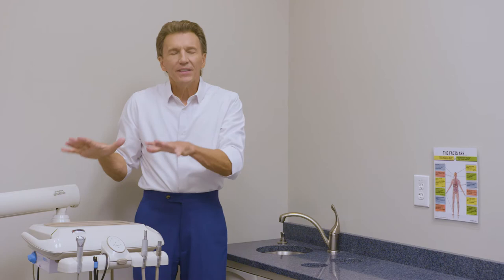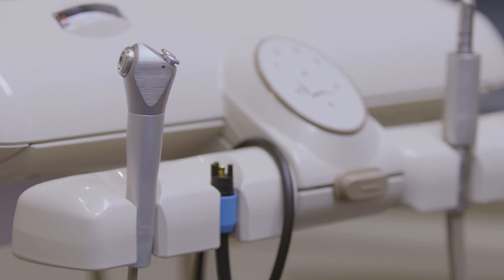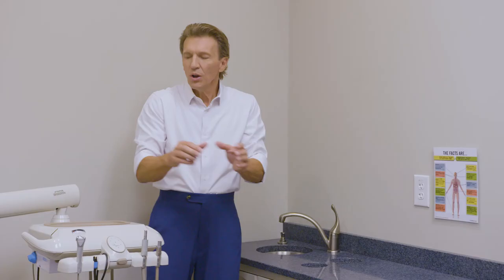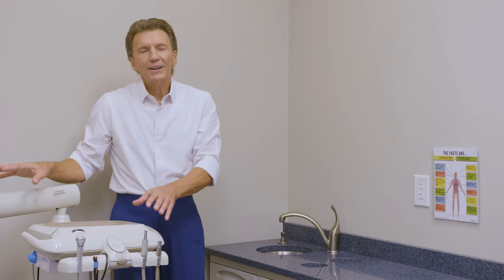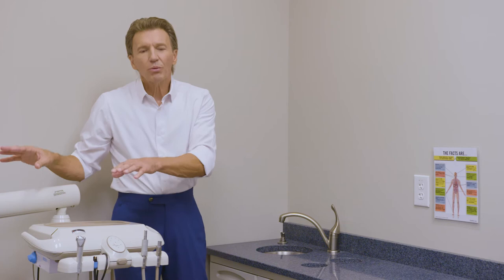There's a huge upside to this when you're in the seated treatment position, because you can bring the unit right in front of you — all your hand pieces and accessories are right in front of you. One of the challenges of a chair-mounted doctor's module is that as I'm gaining access into the operatory and coming to a side cabinet to wash my hands, I have to make sure this unit is pre-positioned properly to keep the pathway open.